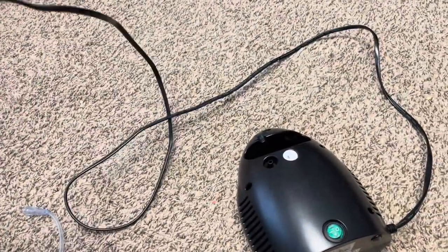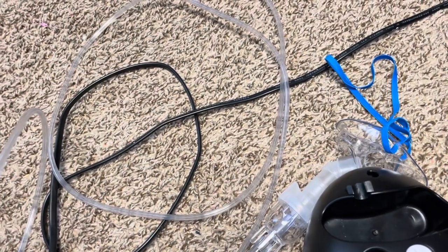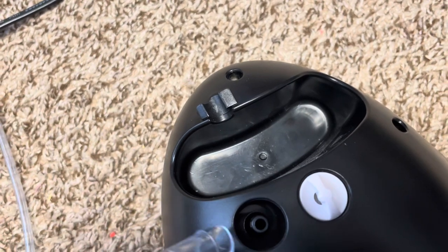The plug is a pretty decent size. This is where you plug the tubing in. I don't know if there are different kinds of tubing, but this is the mask we got — we actually got this from my son's provider, so it did not come with the nebulizer. It's compatible, and I'm assuming the tubes and masks probably use a standard port size for many different compressors.